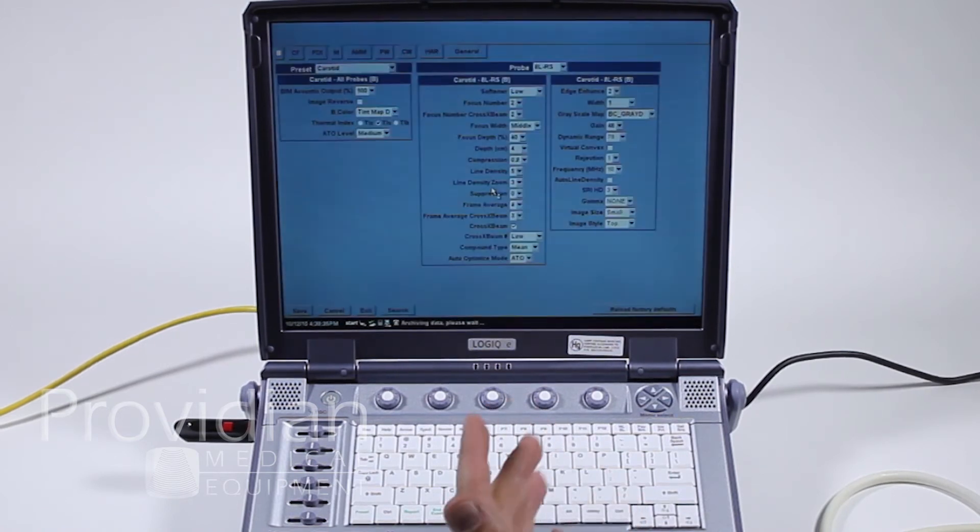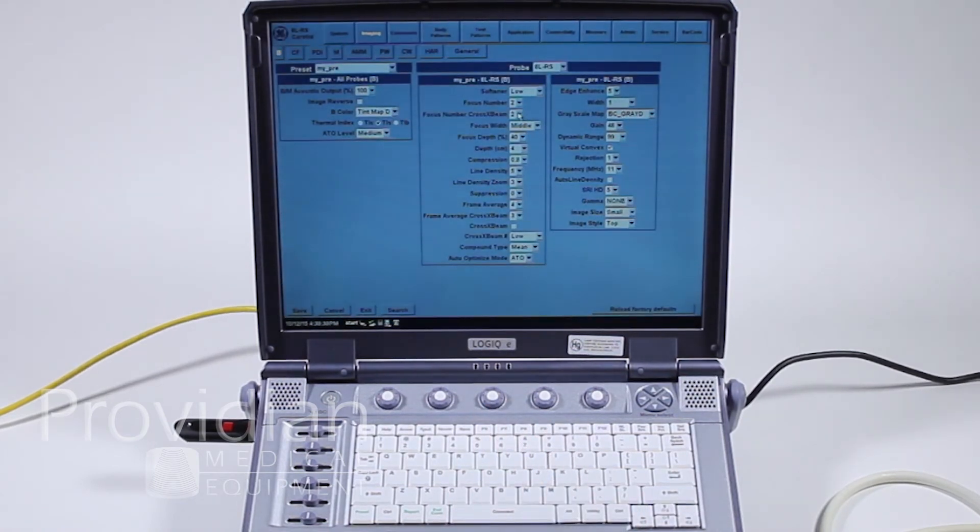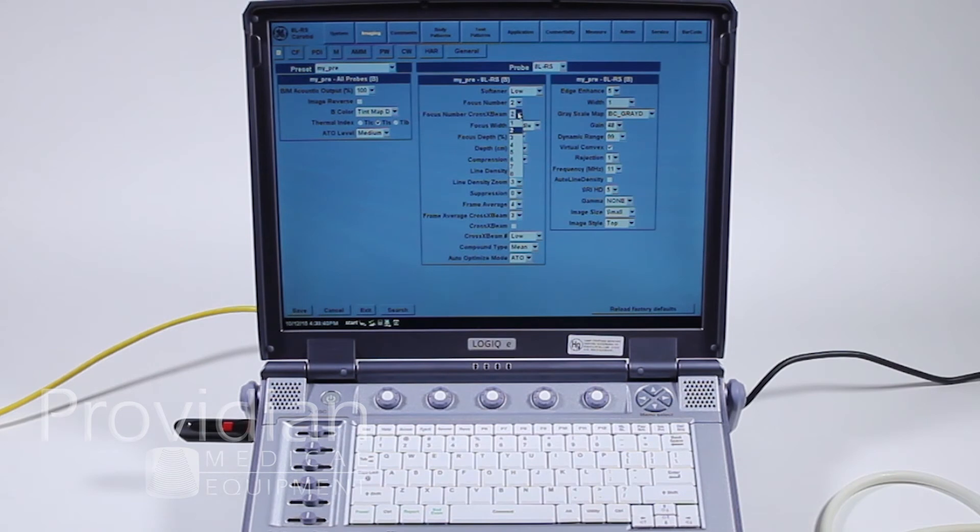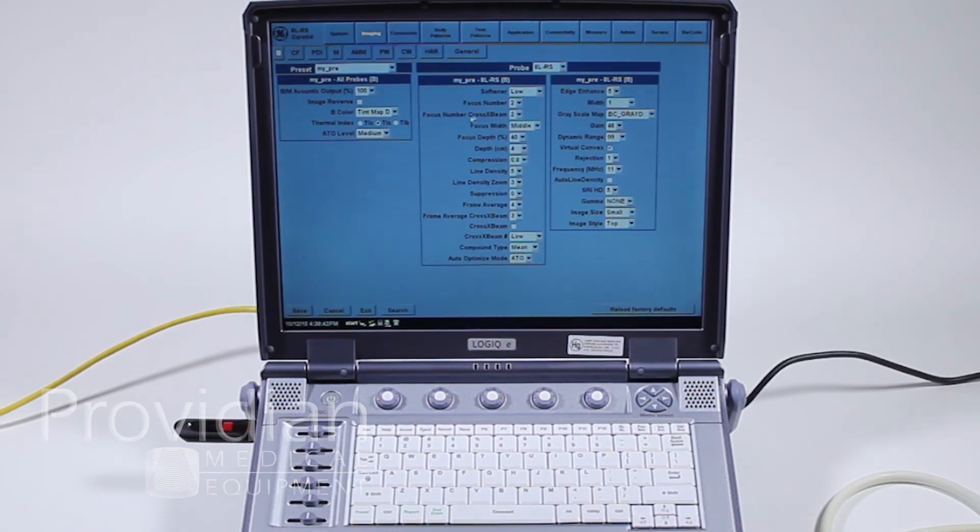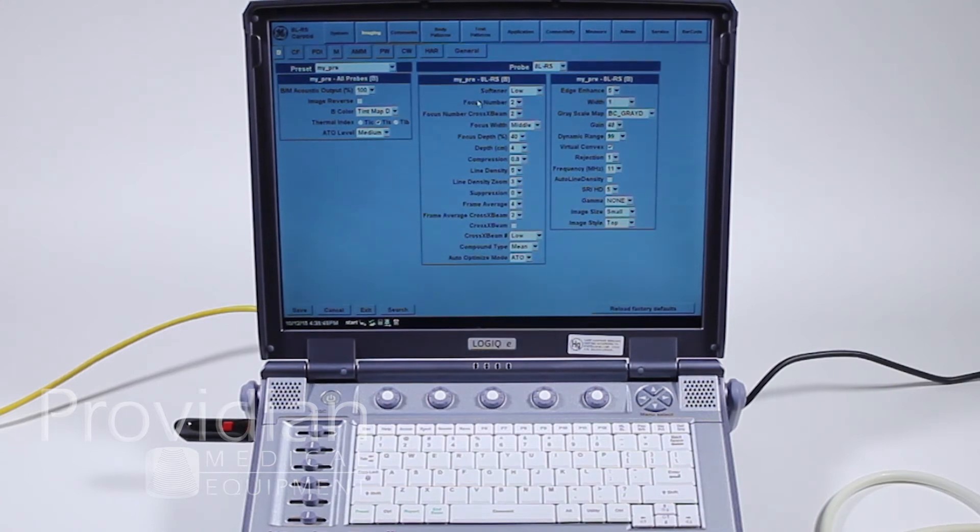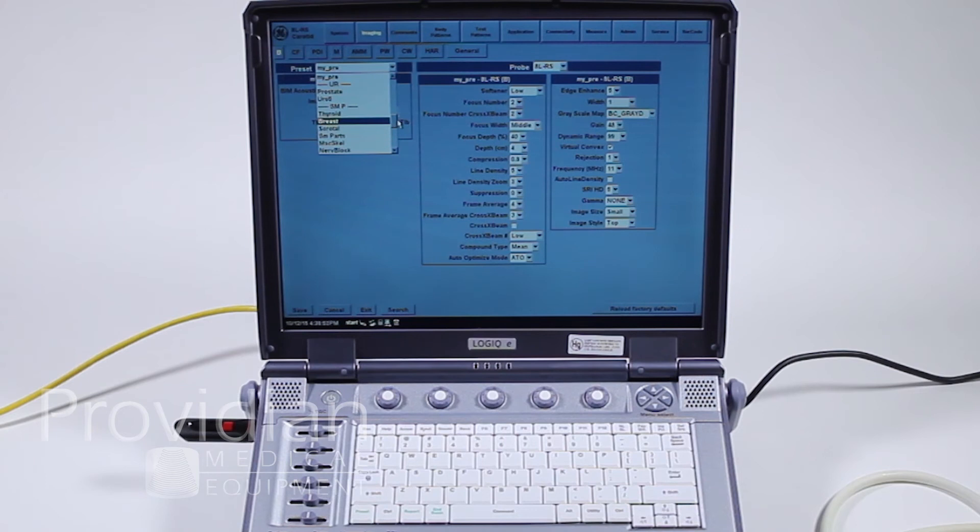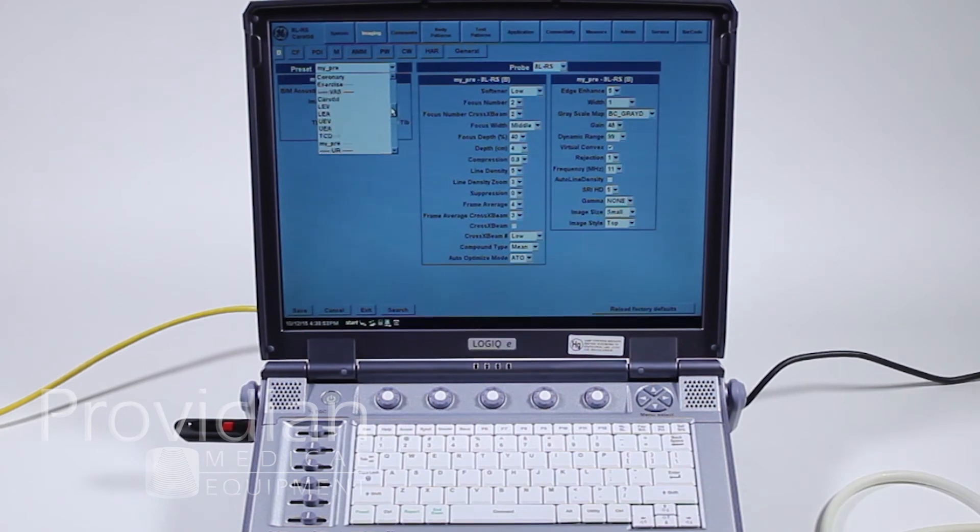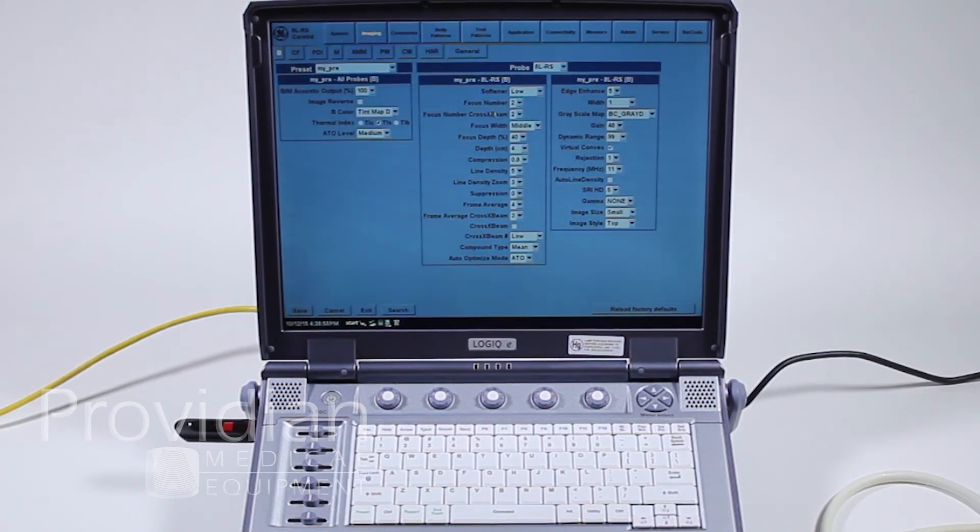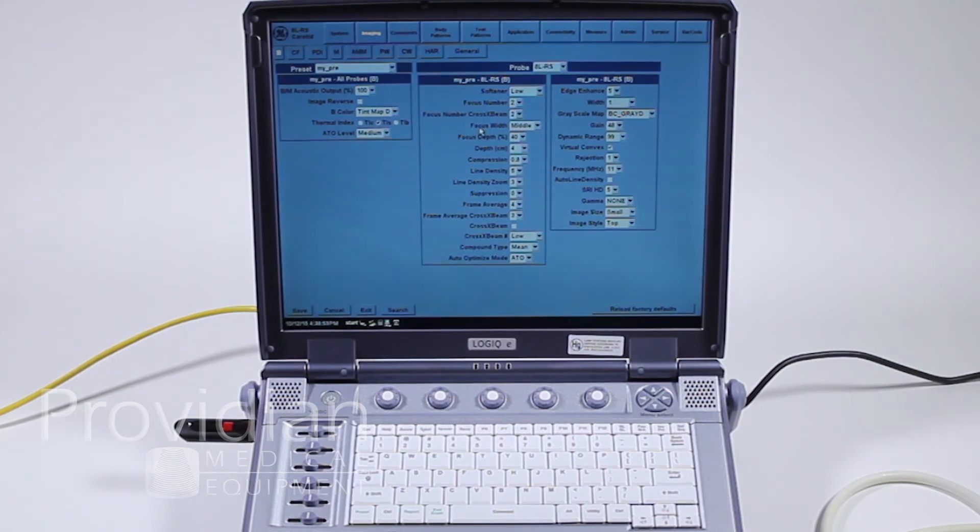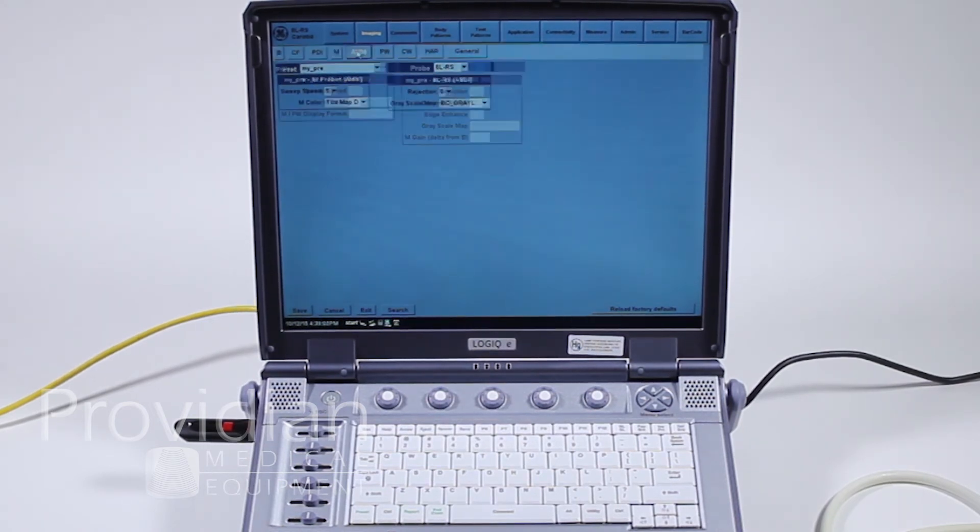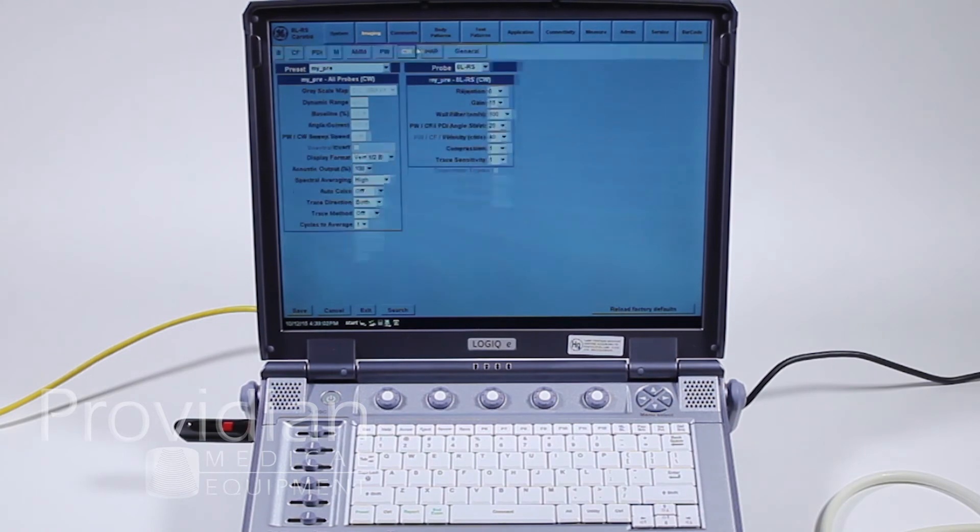The alternative is to go back to this and set all of your parameters. And you can actually get really into nitty gritty about how many focal zones and all of that. But if you go by the other setup, notice up here it's saying I'm going to adjust this my preset as opposed to anything else. I would choose the preset from down there and make my settings. But when you do it the other way, you can view live what impact it has on your image. And you can do this for every single mode.